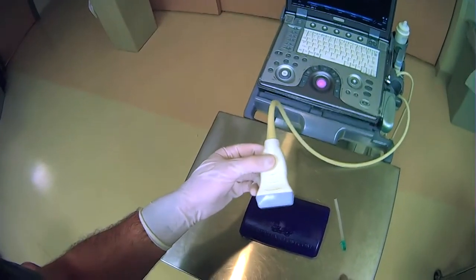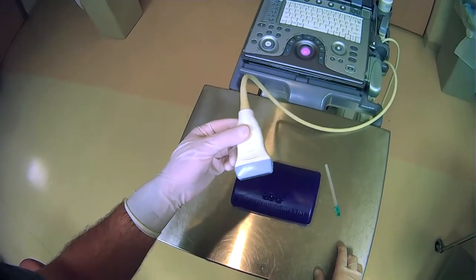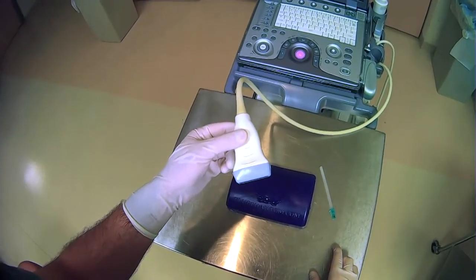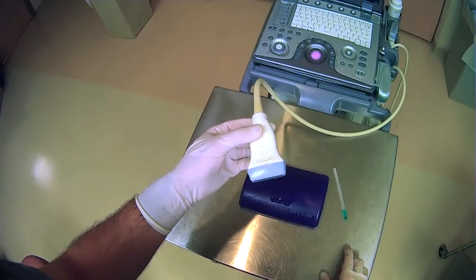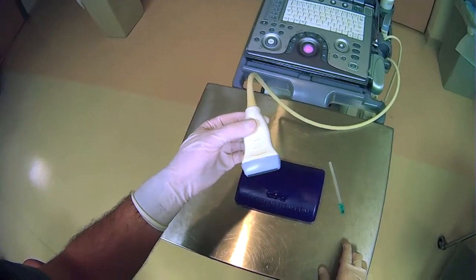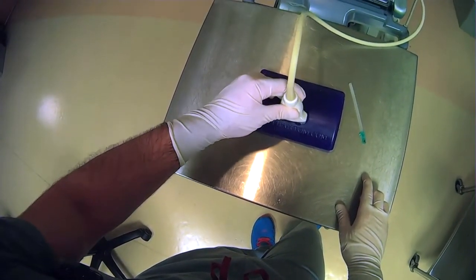A very important topic to discuss is how to physically hold the ultrasound probe in one's hands. Oftentimes you may see others grabbing ultrasound probes like this from up high.